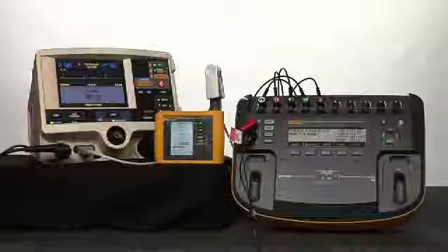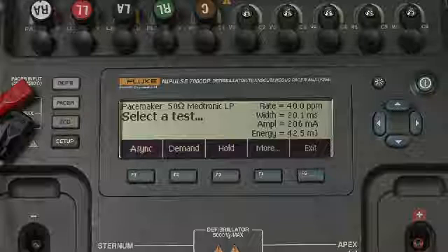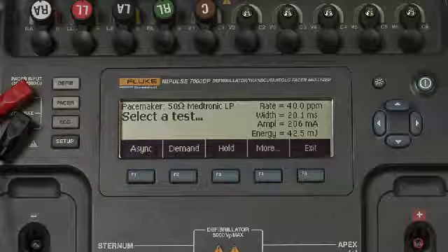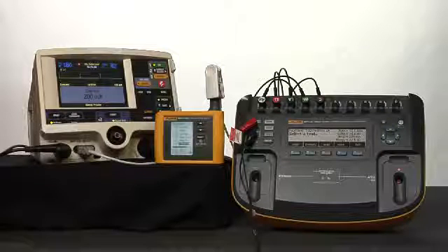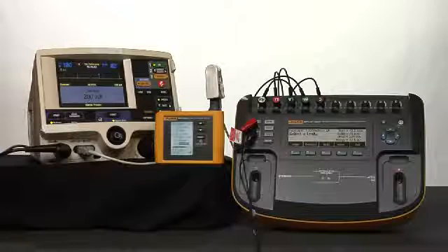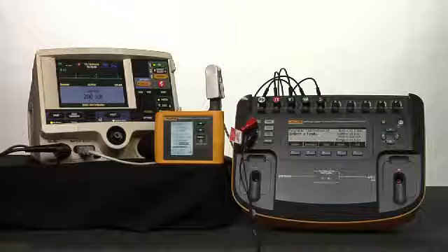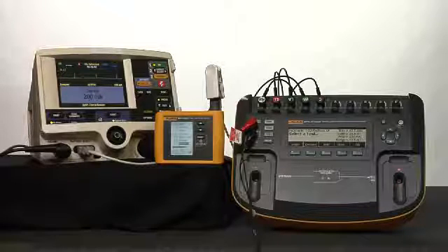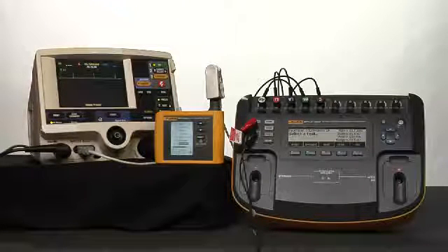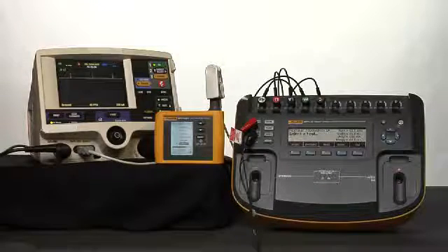And finally, we will take the current level up to 200 milliamps, verifying that the output is between 190 and 210 milliamps. 200 milliamps selected, the measured amplitude is 206 milliamps. This will complete our performance inspection procedure for this device under test. Now you've seen how we can combine the use of both Spotlight SpO2 functional tester and the Impulse 7000 defibrillator transcutaneous pacer analyzer to complete a defibrillator pacer test, including the shock advisory AED mode and the alarm settings of the defibrillator.